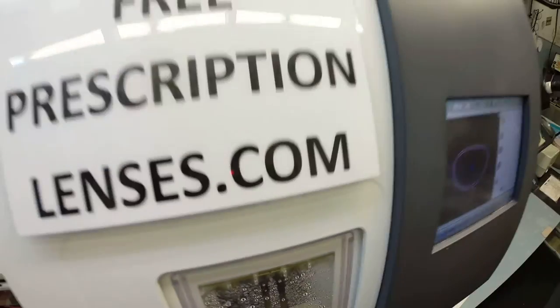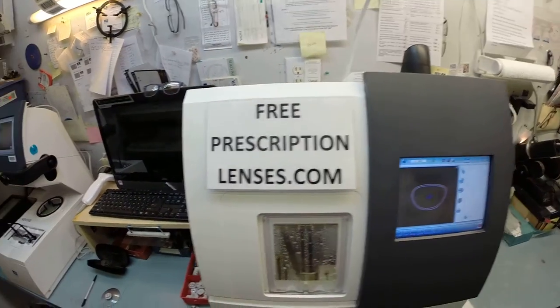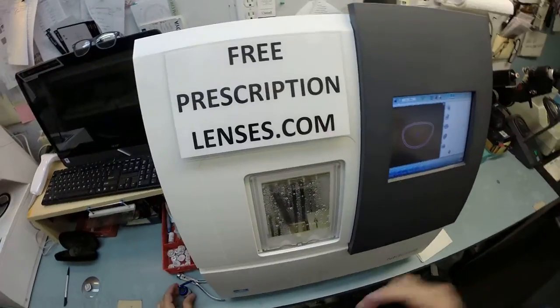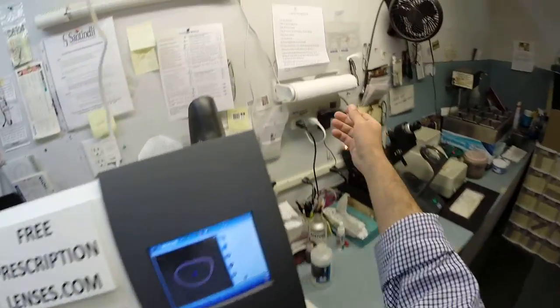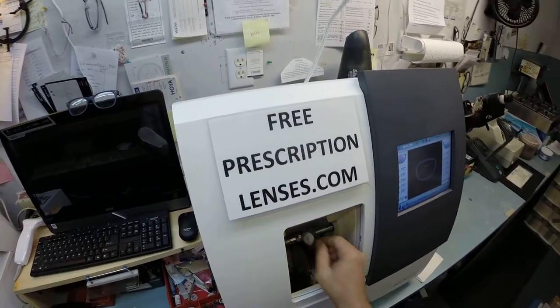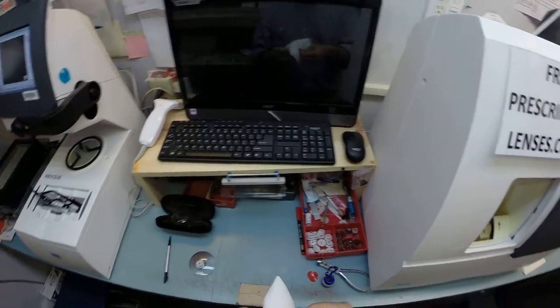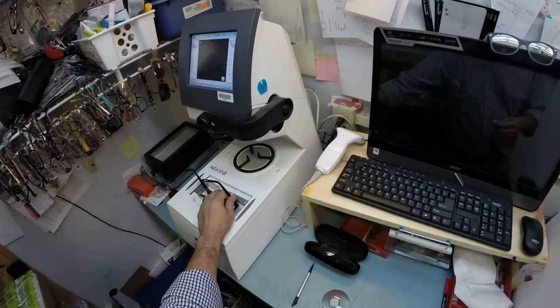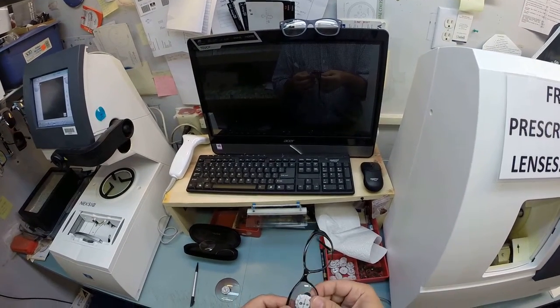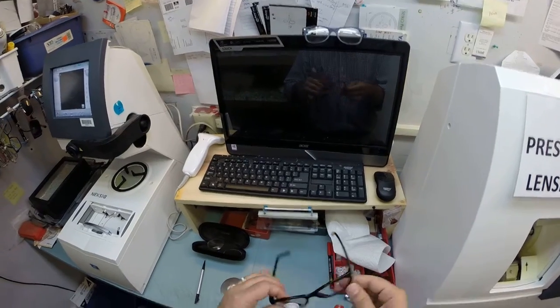Okay, so the right lens is done. In just a moment, the door will open. Let me go ahead and get a paper towel ready. Let's go ahead and open up the chuck, pull that out, dry everything off there, and grab your frame. I'm going to tuck the lens in at the outside corner, press down at the nose, and that snaps in perfectly.